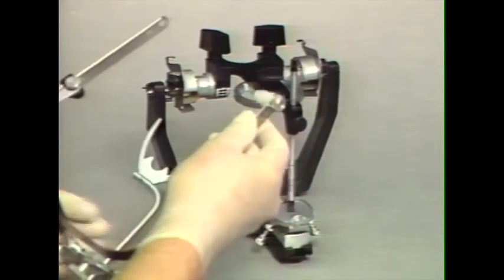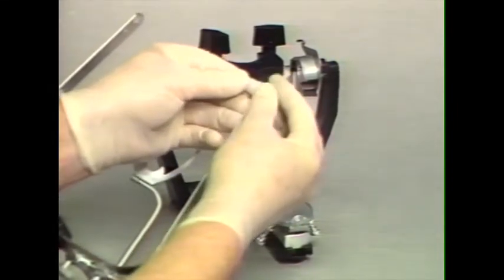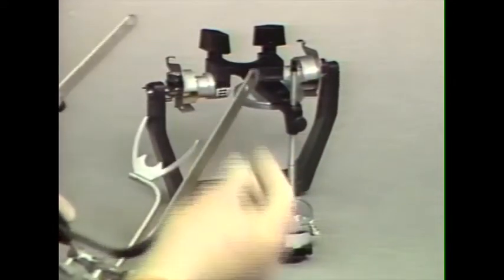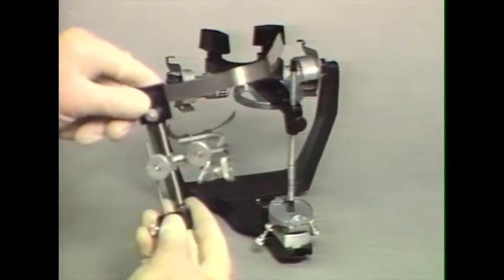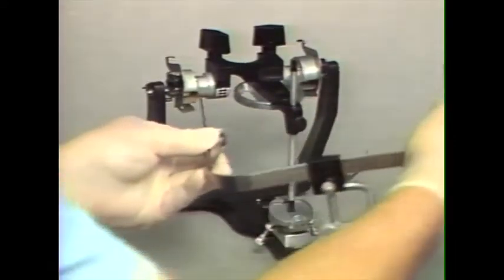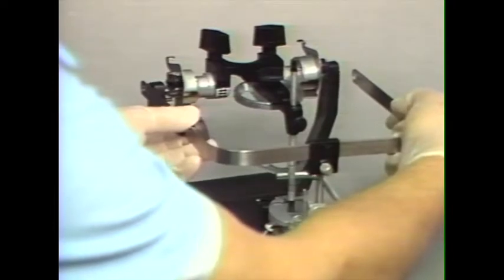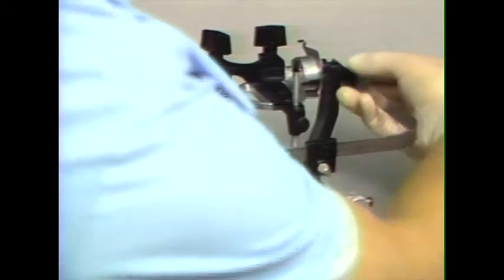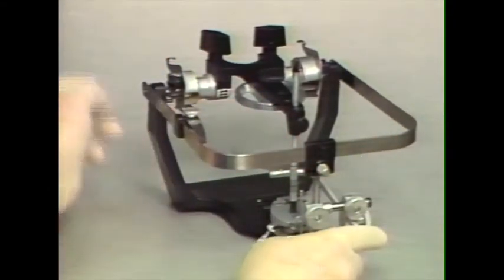To use the direct mounting, we need to remove the ear rod and attach an anterior elevating device onto the anterior vertical rod, and then spring the face bow apart and place it onto the condylar axis of the articulator. It snaps into the second hole on the side arm of the face bow.